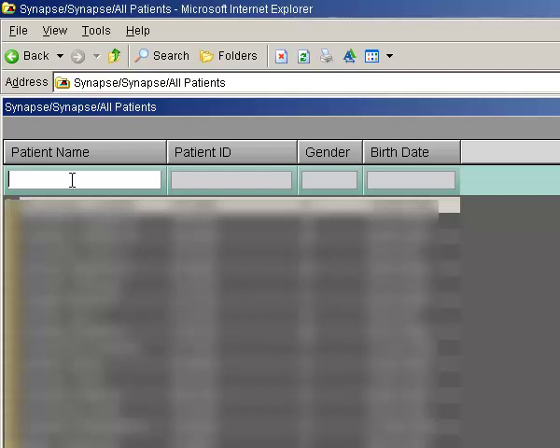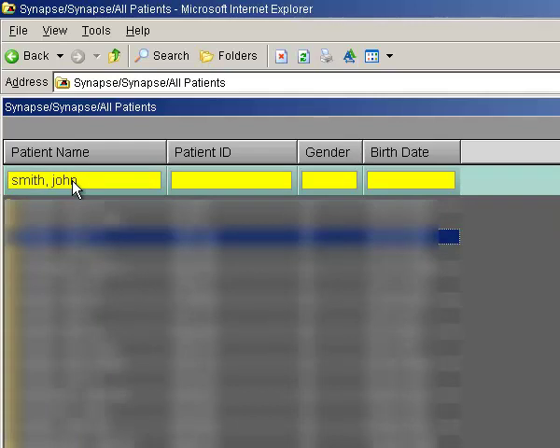Alas, my search information is gone and I have to type his name again. If you are following along and your patient's information is still there, you can ignore the next few seconds of this video. Let's make Synapse always remember my last search field information so I don't have to waste keystrokes. We are now going to go into the Synapse program properties to make sure this never happens again with a few simple mouse clicks.